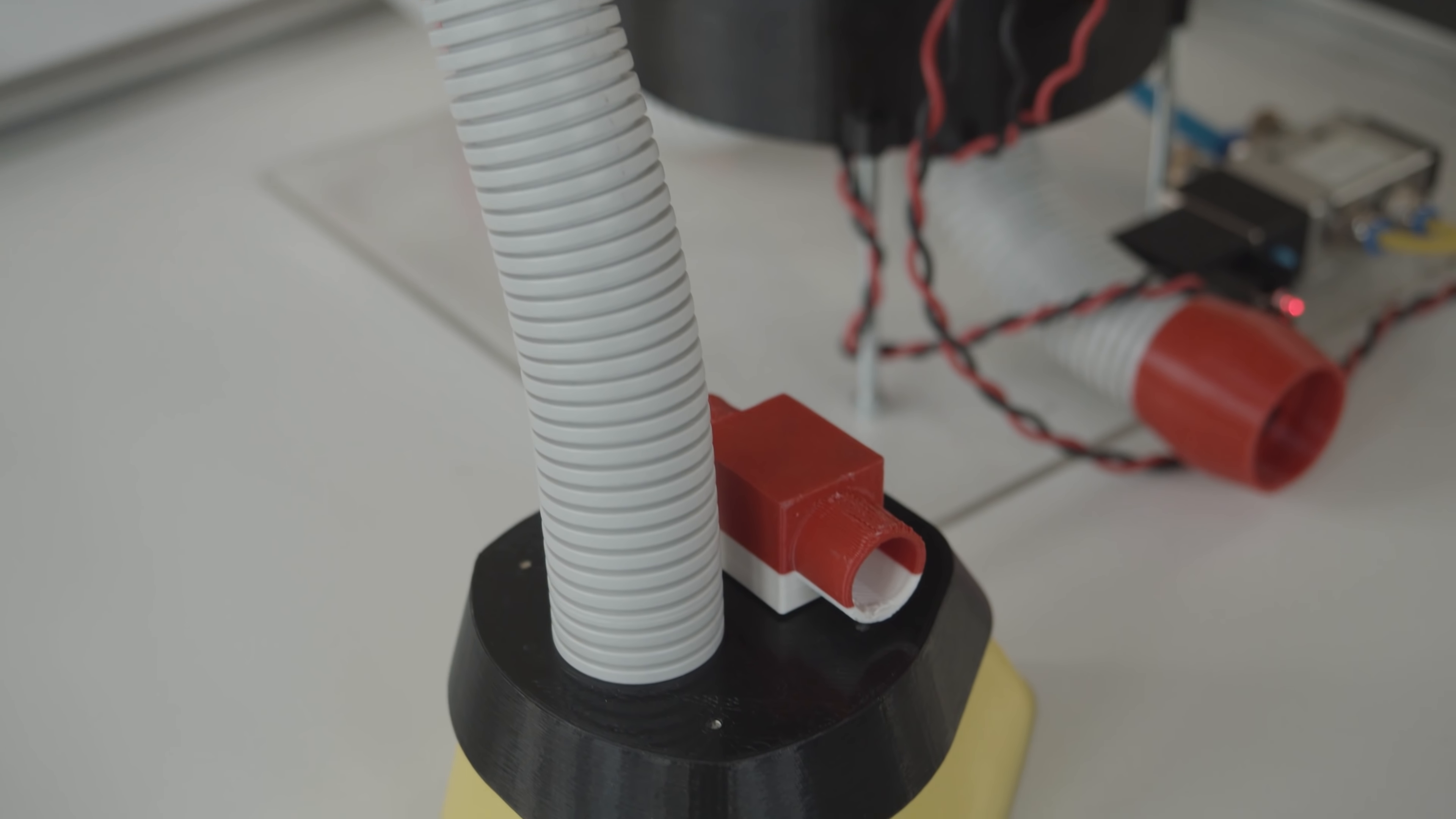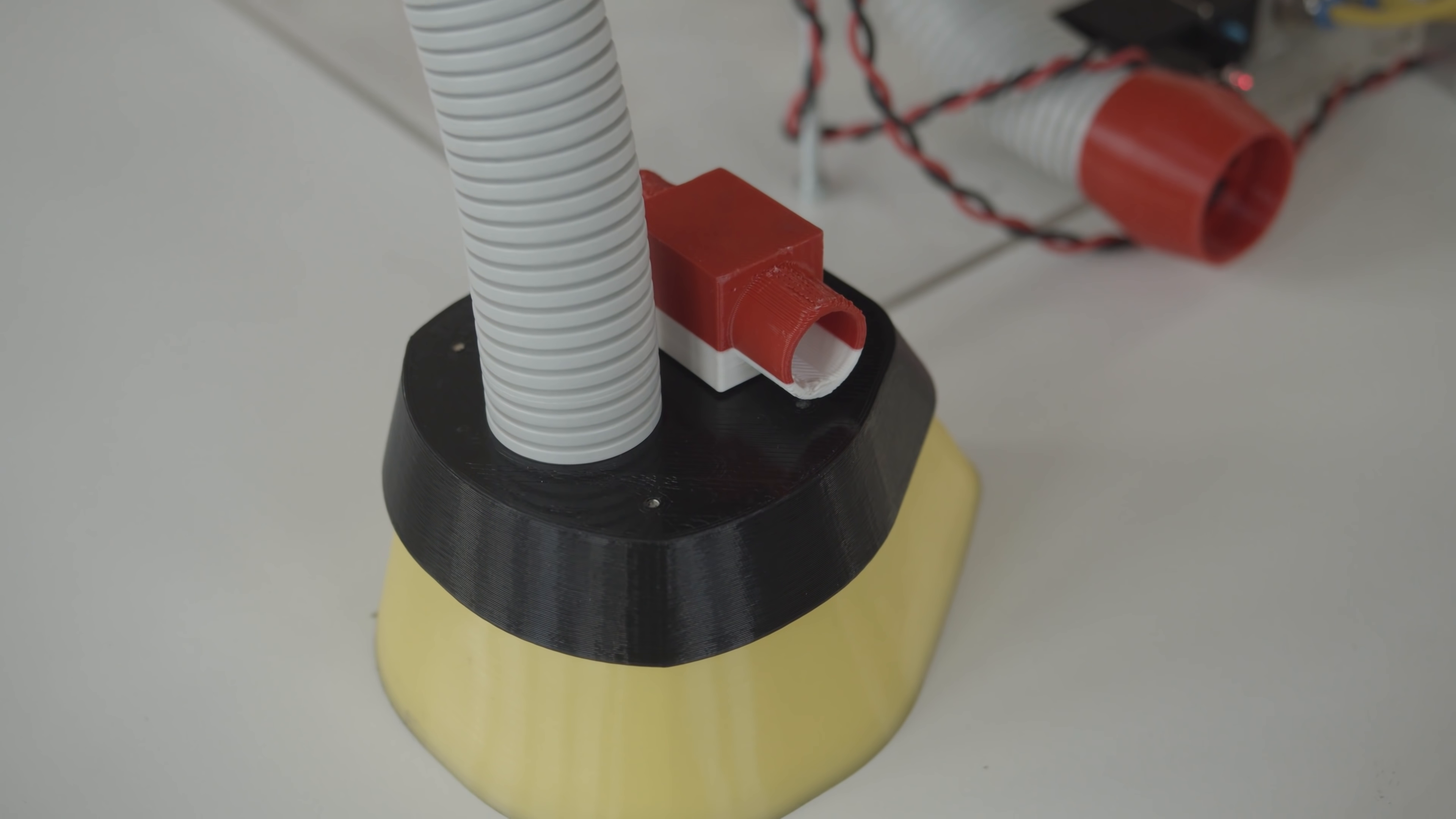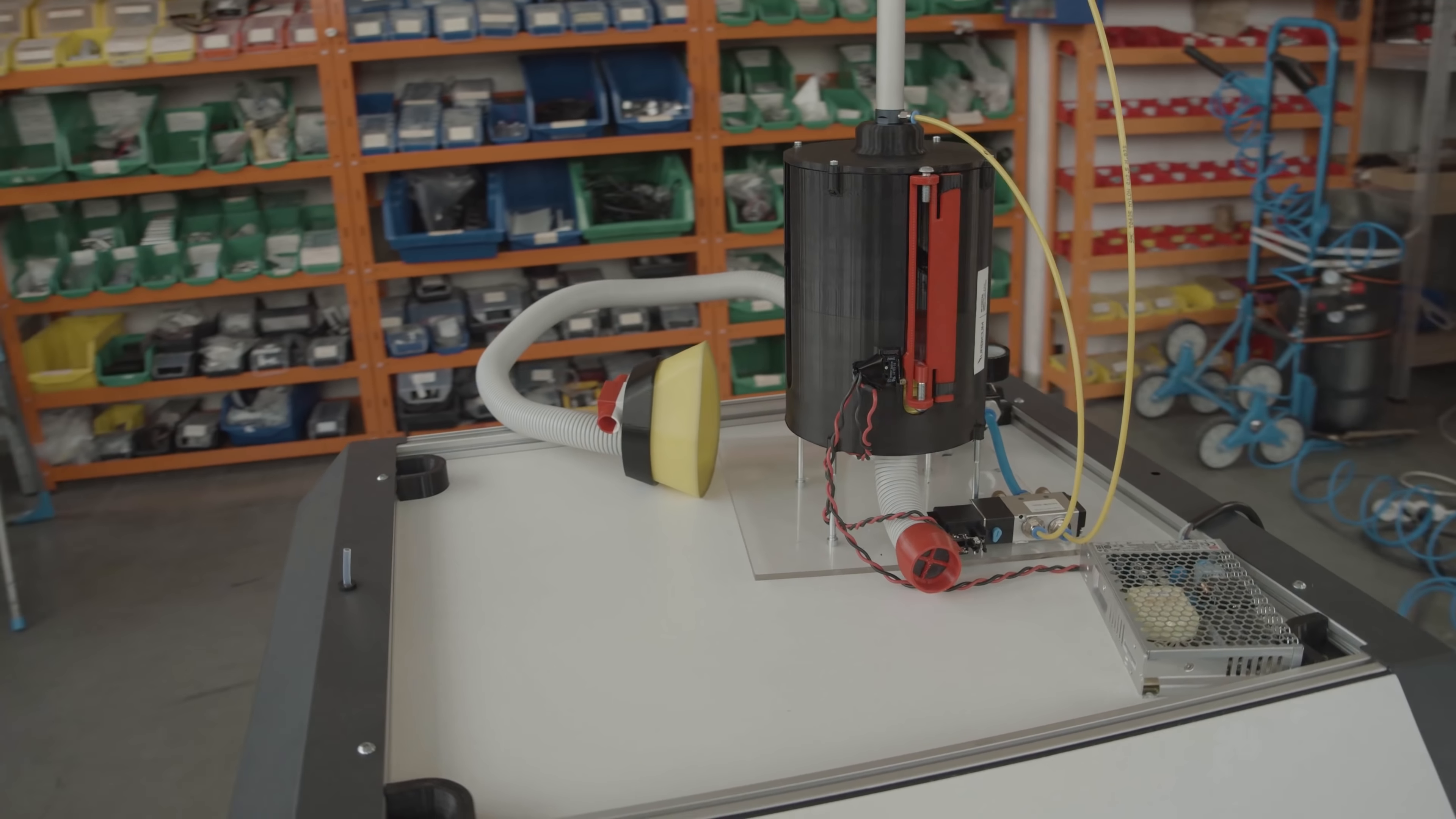The manual is very simple. It's just a couple of pictures. Even if you have pictures and some very basic technical skill, you are able to mount the 3D printed ventilator.